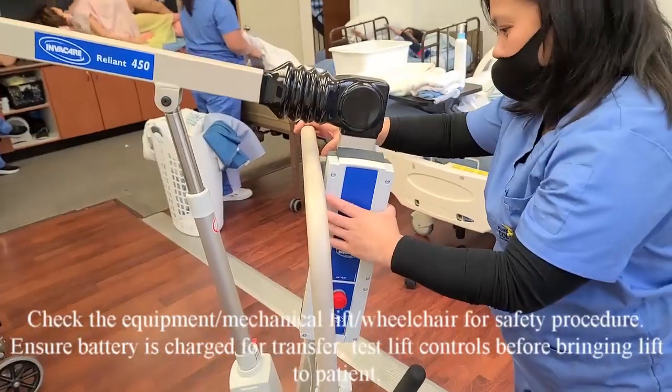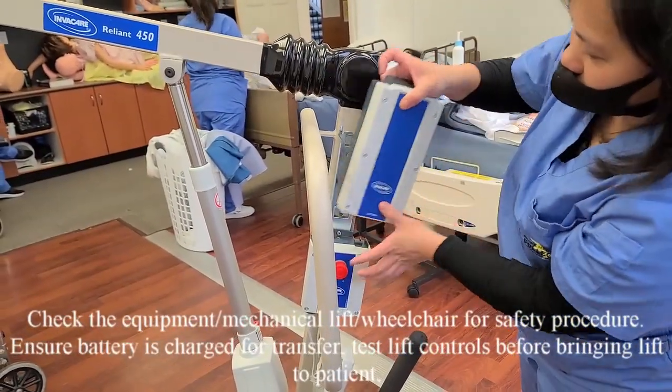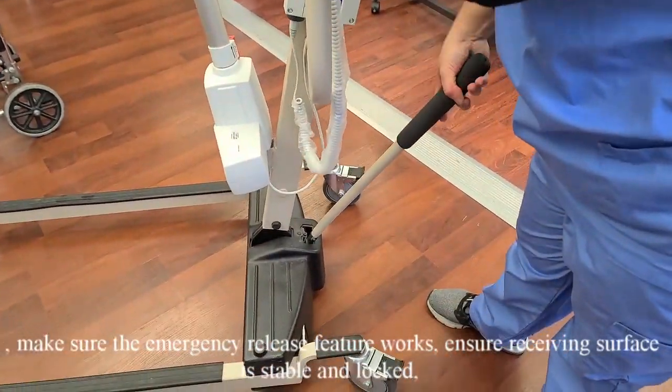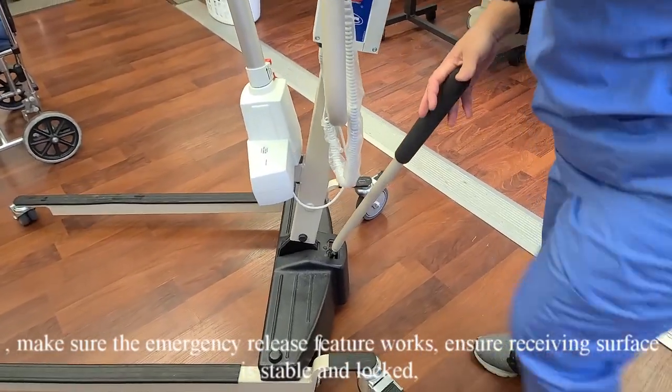Check the equipment. Check the mechanical lift and wheelchair for safety procedure. Ensure the battery is charged for transfer. Test lift controls before bringing the lift to the patient. Make sure the emergency release feature works. Ensure the receiving surface is stable and locked.